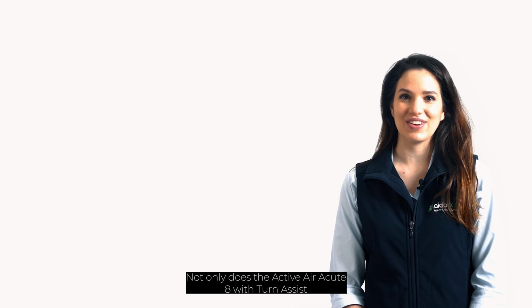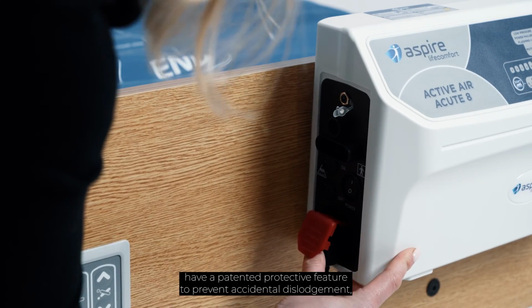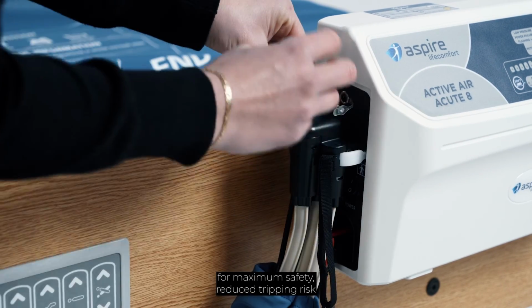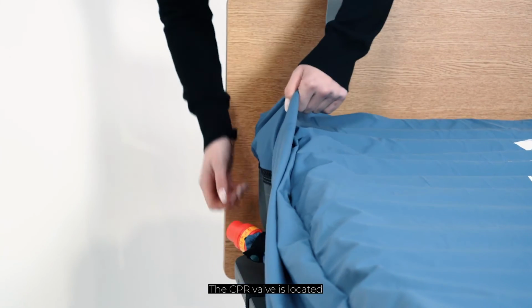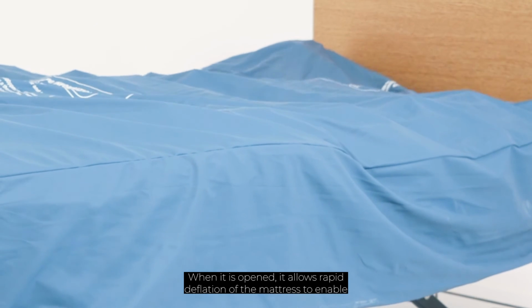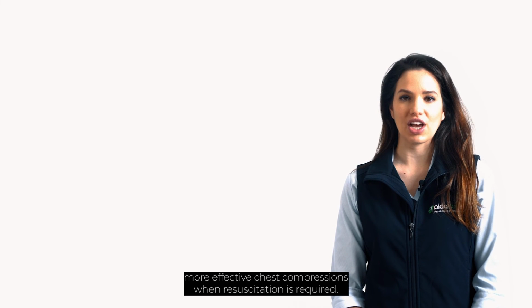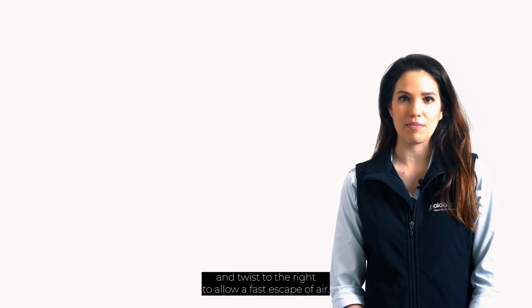Not only does the Active Air Acute 8 with Turn Assist have a patented protective feature to prevent accidental dislodgement, the cord itself can be retained on either side of the mattress for maximum safety, reduced tripping risk and convenience. The CPR valve is located at the head end of the mattress in an easy to access location. When it is opened, it allows rapid deflation of the mattress to enable more effective chest compressions when resuscitation is required. To open, pull the nozzle back and twist to the right to allow a fast escape of air.